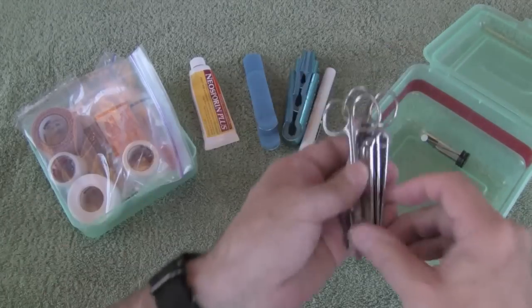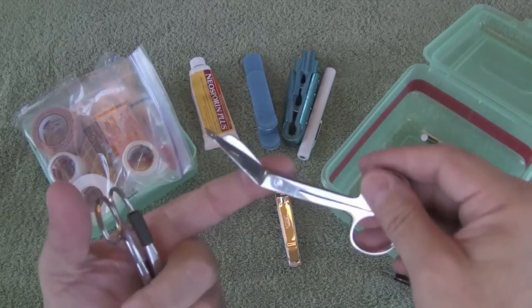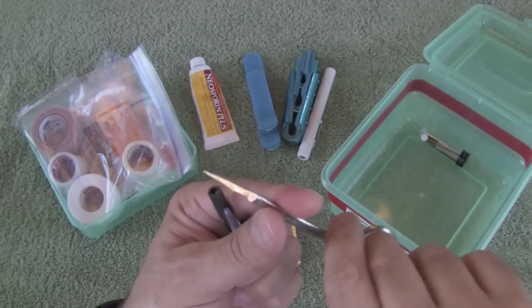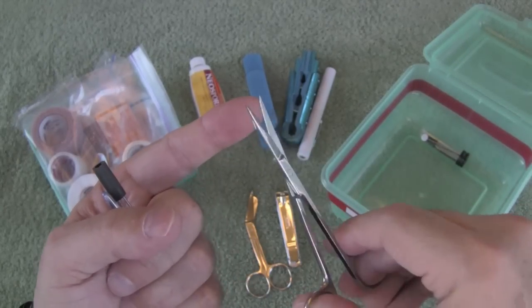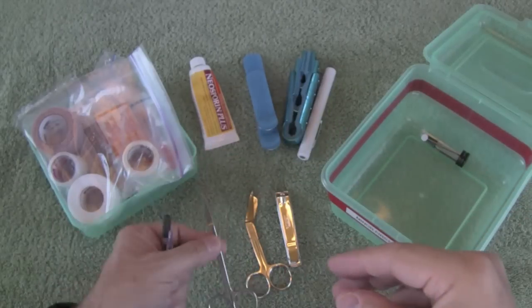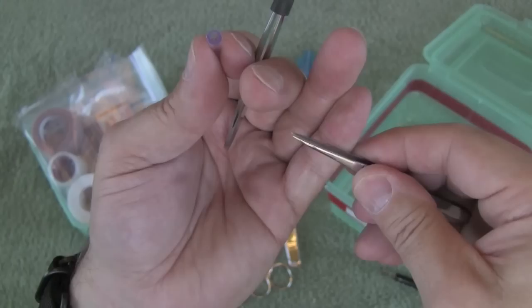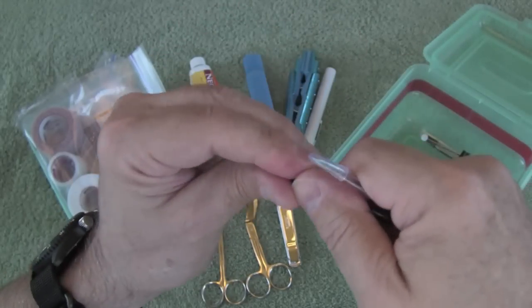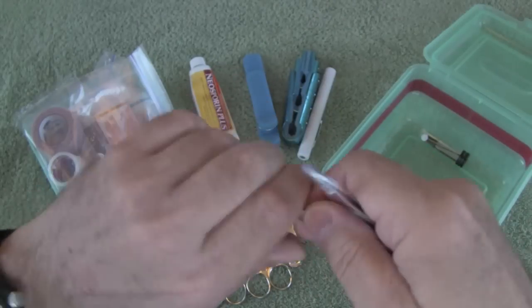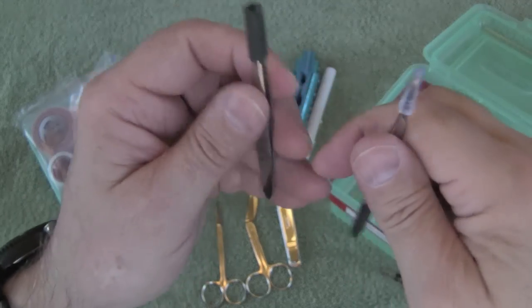Now the instruments. There's a fingernail clipper — you've seen that in my level 2 first aid kit; these things are just invaluable to have for various reasons. A pair of 4-inch bandage shears, which you can get at REI and at most pharmacies. Then there's a sharp pair of scissors — I've found this helpful for cutting away a blister that's popped and has a piece of skin flopping on the surface that you can gently trim away. And then tweezers: a pair of extra sharp tweezers from REI, and another pair of blunt tweezers for pulling little splinters. I just put a piece of rubber tubing from a chainsaw gas line over the top to keep them protected and closed.